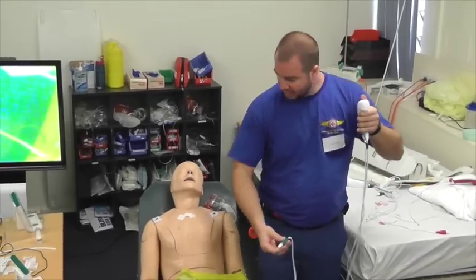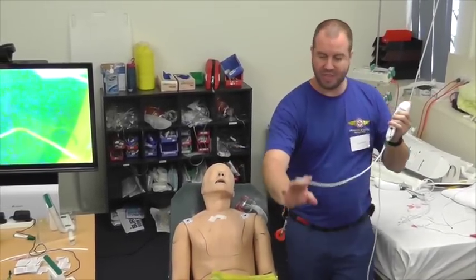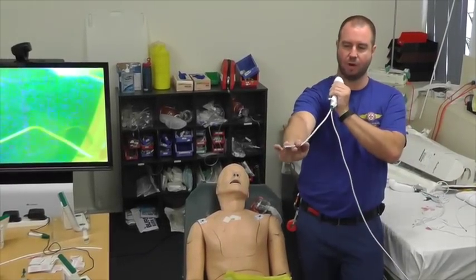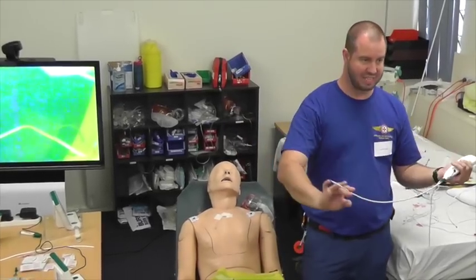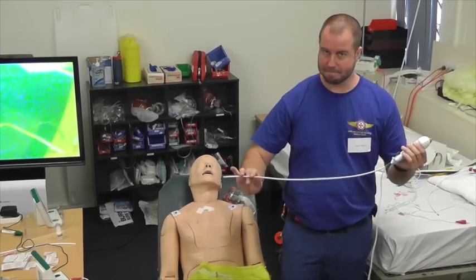The way they work is they plug in with an arrow into your monitor. We'll talk about the monitor in a second. There's a thin wire that goes down either side of your scope so that you can move it backwards and forwards. But that's reasonably weak, and if you're too aggressive with it, it will snap, and then you're unidirectional. Okay?